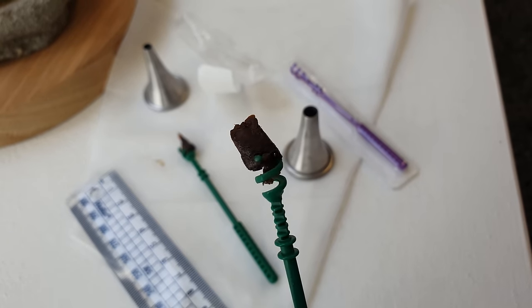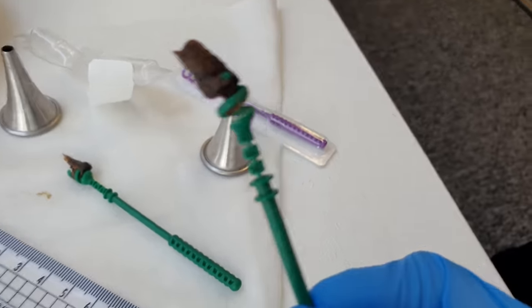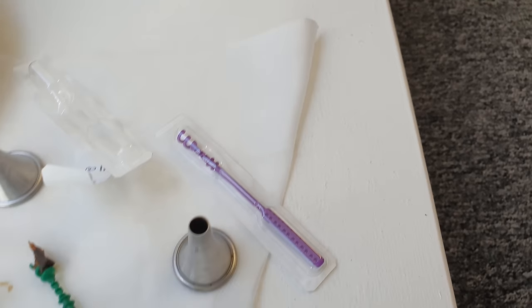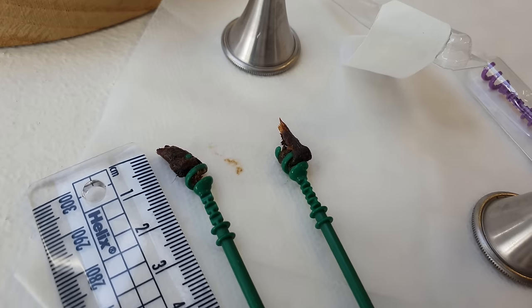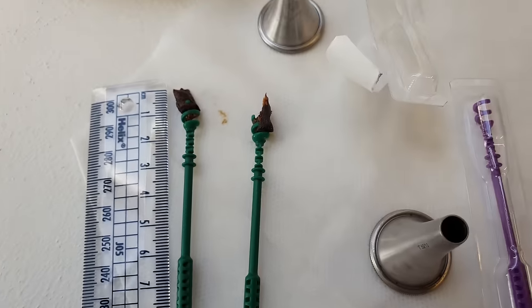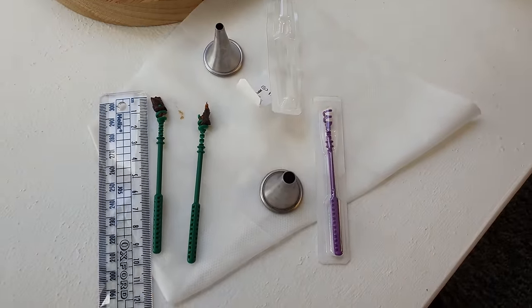So what are my final thoughts on the EarWay Pro? I have a couple of thoughts. First and foremost, if you're going to use these things, there is a learning curve which you should be aware of. Although the basic technique seems rather easy to master, it does take a little bit of time to get good at.